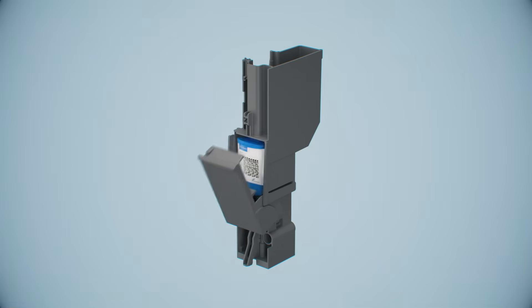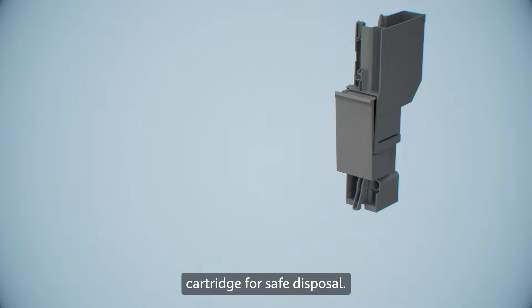The test is now complete, and the cartridge may now be removed from the GeneXpert module. All contents remain contained within the cartridge for safe disposal.